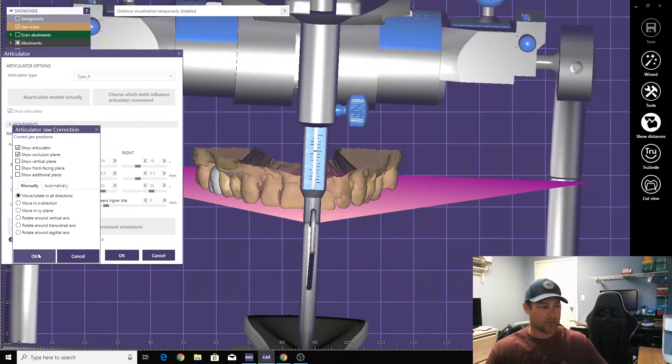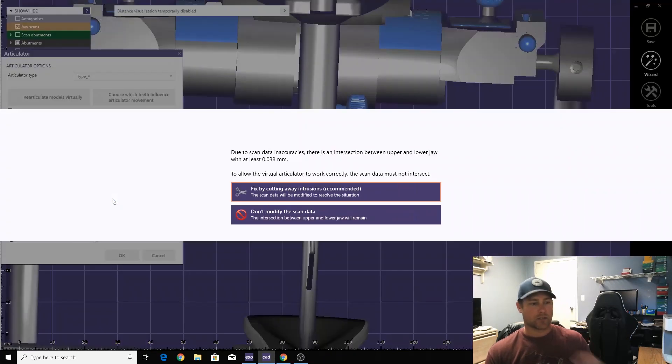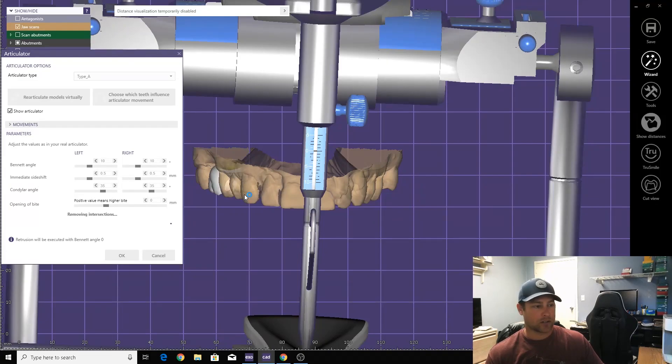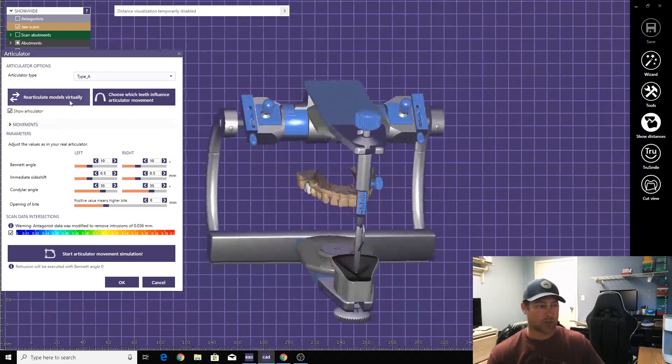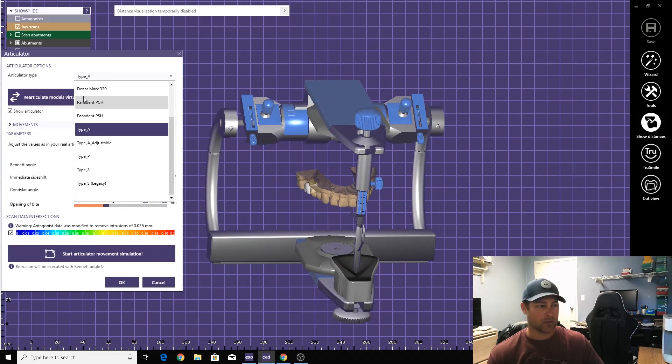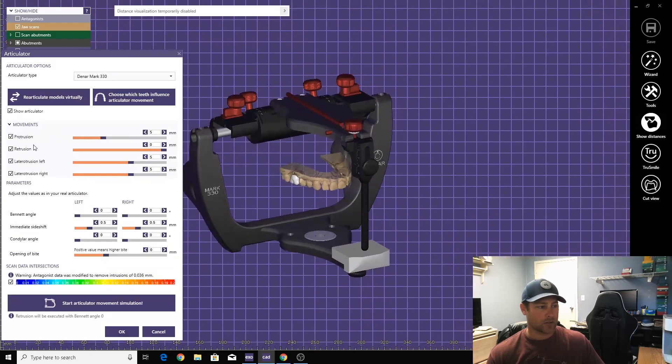It's a little tricky at first, but you'll get the hang of it in no time. It's really not that hard. Just imagine the little joystick in your hand as the actual object that you're moving around, and you'll be good to go.